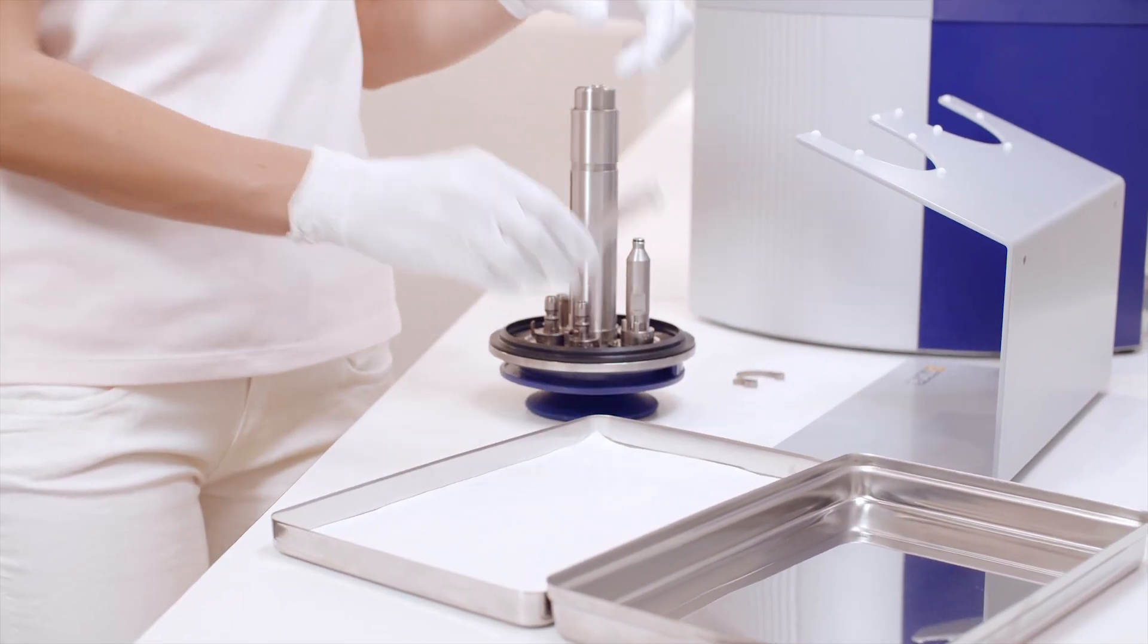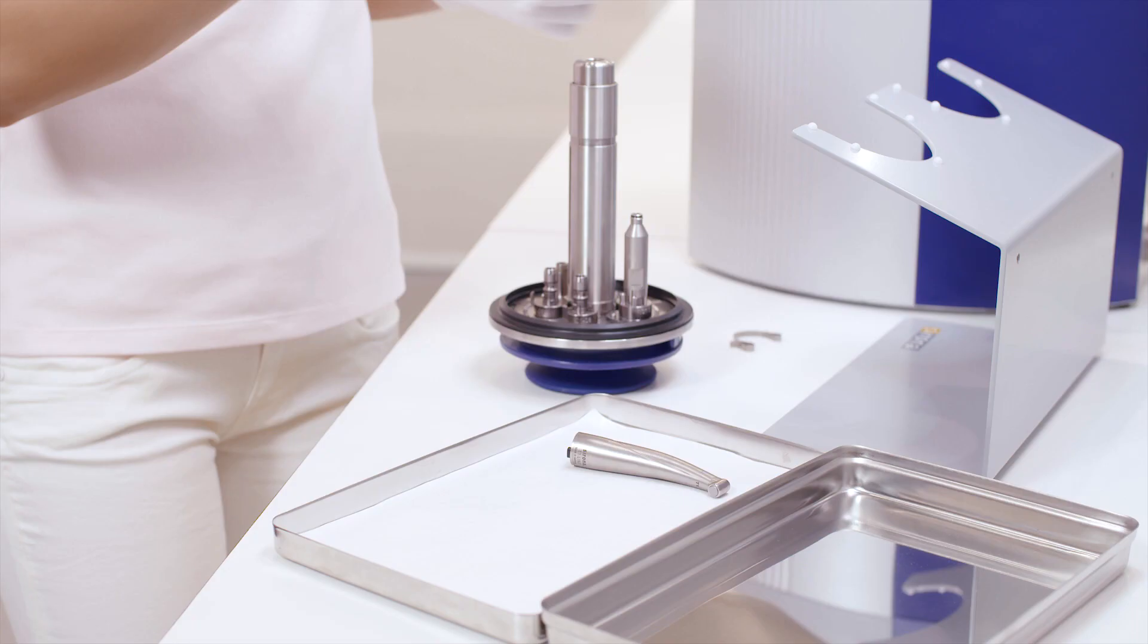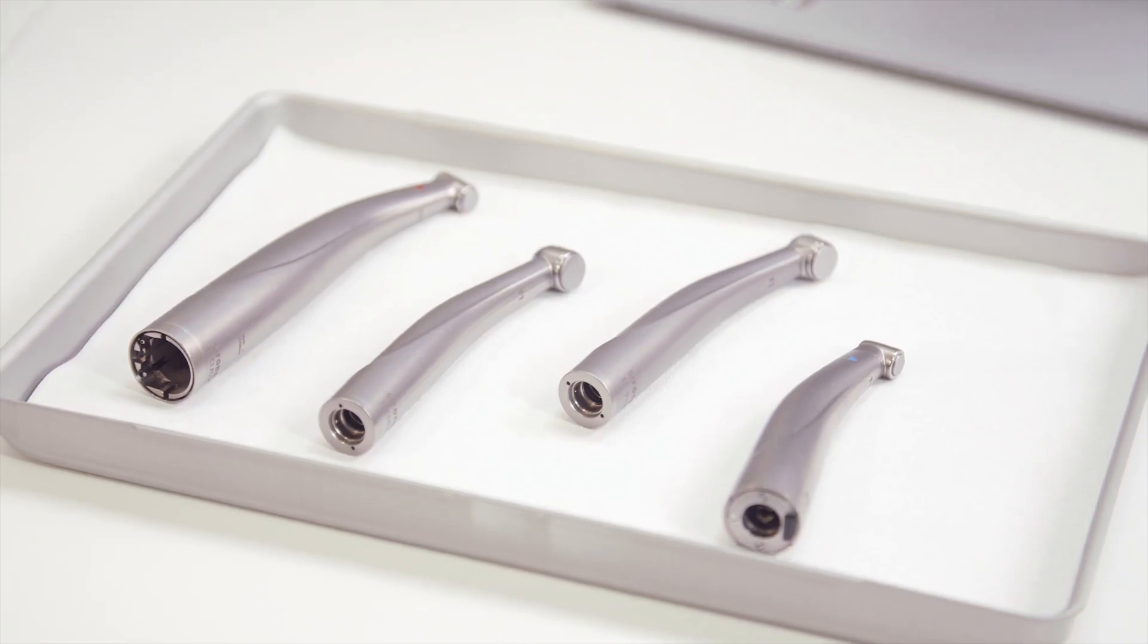Once the instruments have cooled down slightly, they can be removed from the lid. They are now ready for your next treatment.